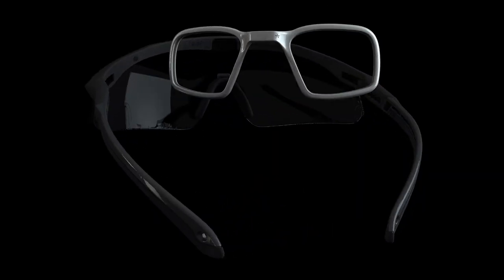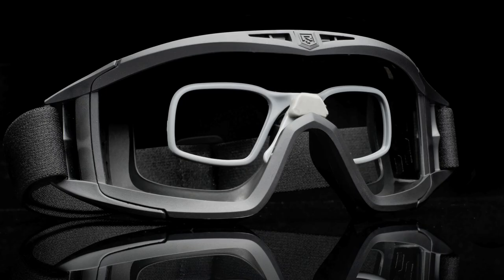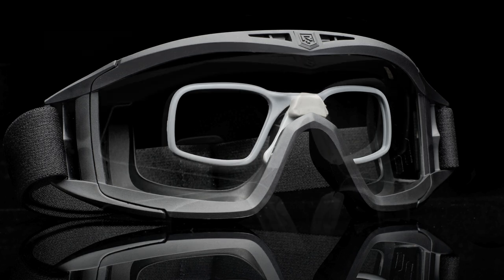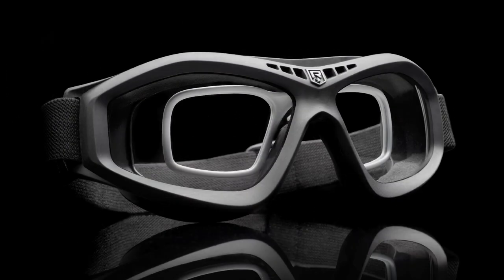A single push onto the post and it's installed. So robust, easy to use, smart design. So I think it was a good project all around. This new RX carrier fits across our product range and meets all of the current standards.